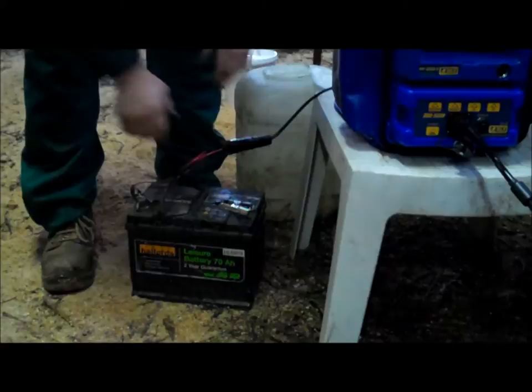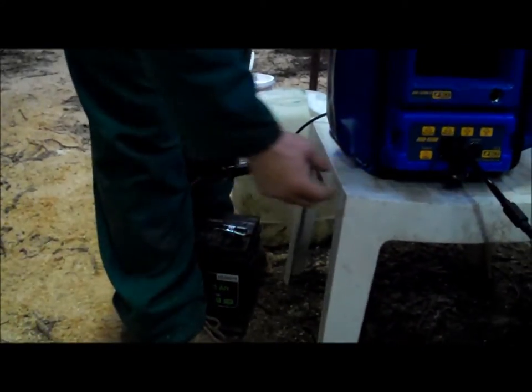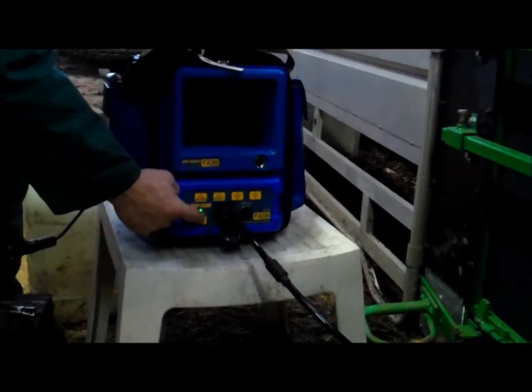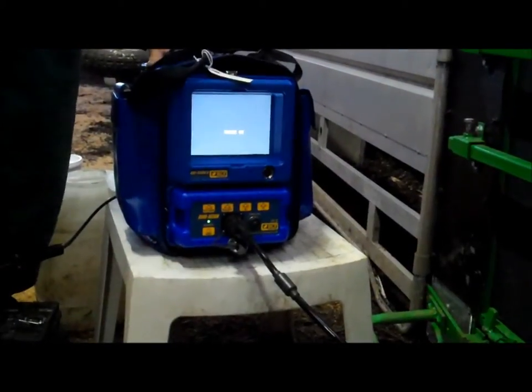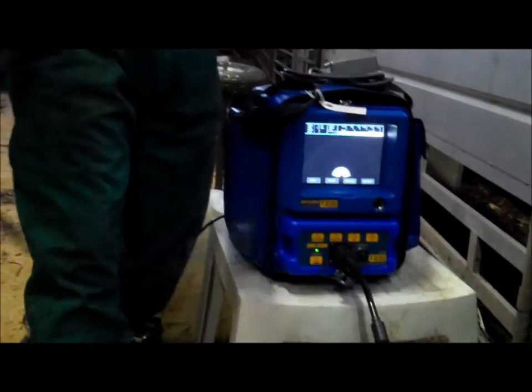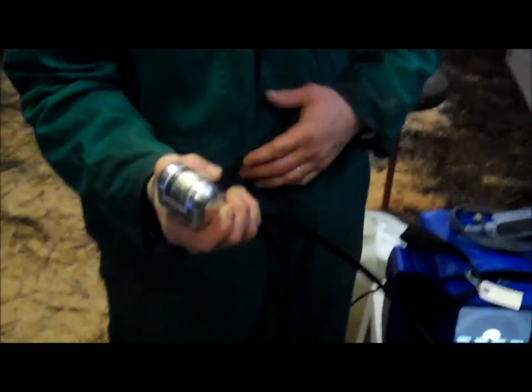Switch in here and on button — just hold the power down for a couple of seconds. That's you up and running. As you can see now, the motor has started to move in the probe.